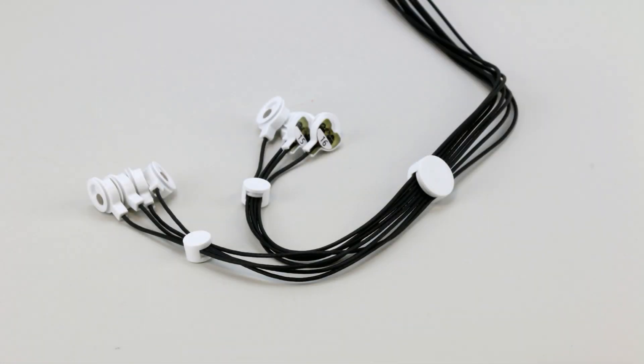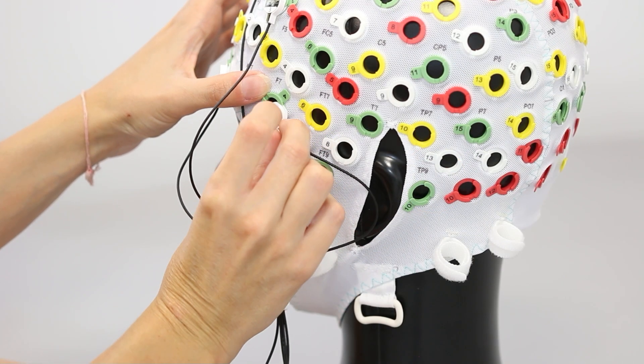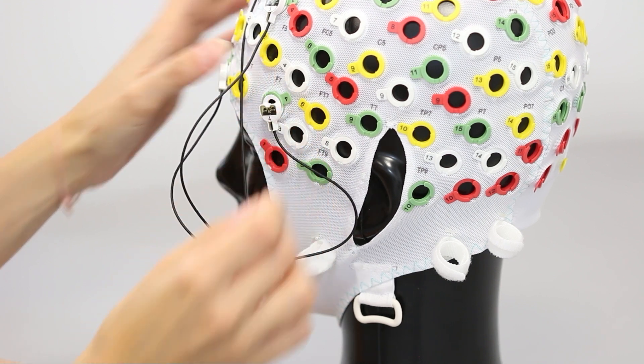Adjust free length of lead wires with the white cable guides. Avoid allowing too much free length to prevent movement artifacts and cables tangle.